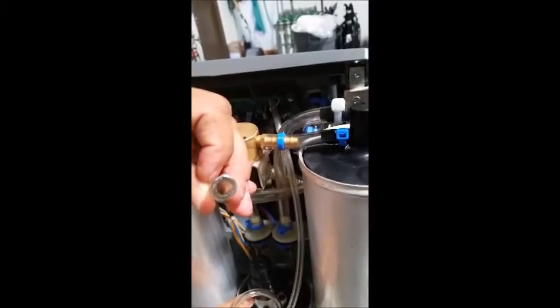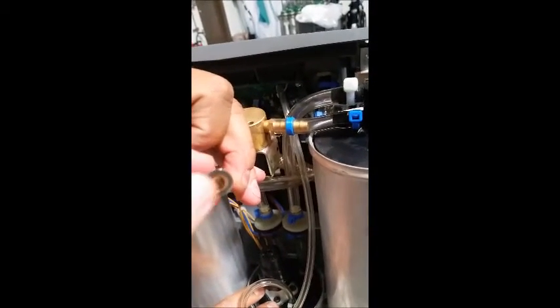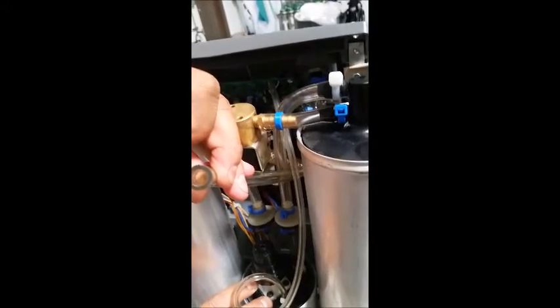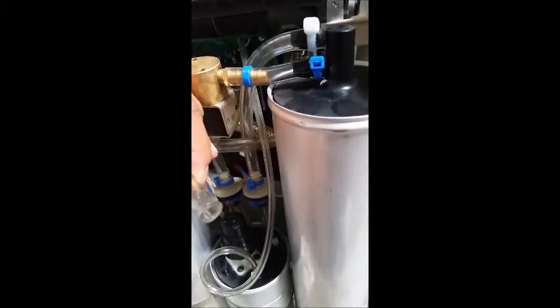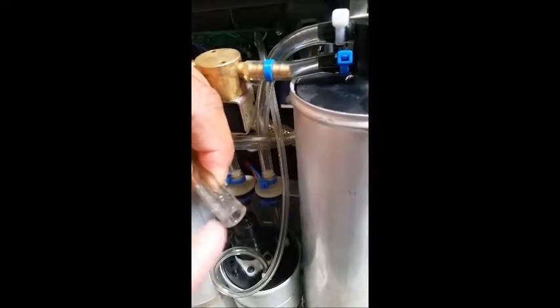You may wonder why it would be the tubing, especially since the tubing is not frayed. But what can happen, especially in desert climates, is that as the heat builds up, this plastic will expand. That's what causes the leak — air comes around the expanded area. After cleaning, we were able to tell it wasn't really the zip tie but that the tubing has expanded right here.